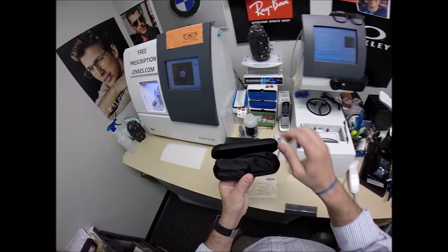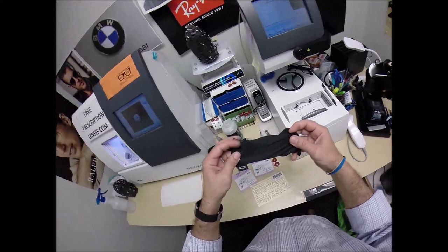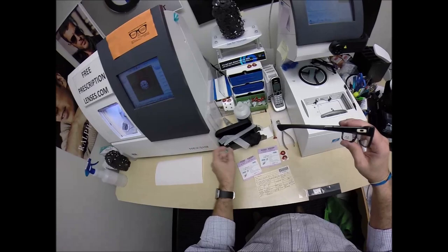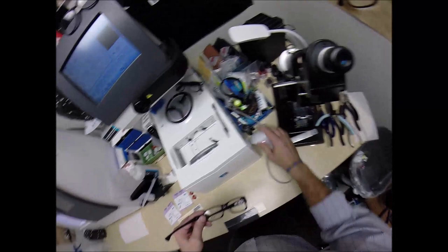But this is the Oakley AirDrop, the 8046, your hard shell Oakley case, your Oakley cleaning cloth, carrying bag, all around little black baggie. It's alive, I've got it, it's like a fish I've caught it. Comes with two little plastic sleeves on the temples to protect the temples from rubbing together during shipping and I'm going to put that on there when I ship to you.